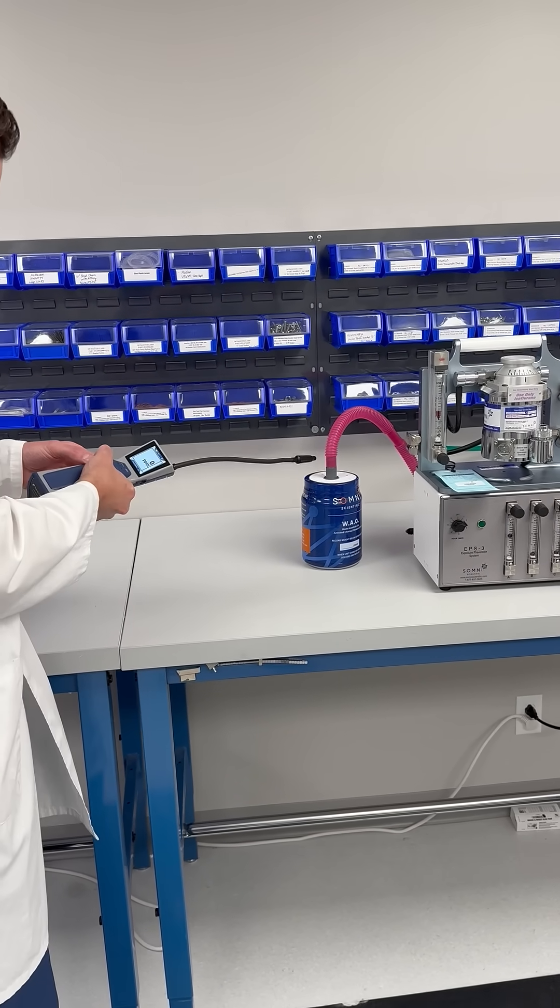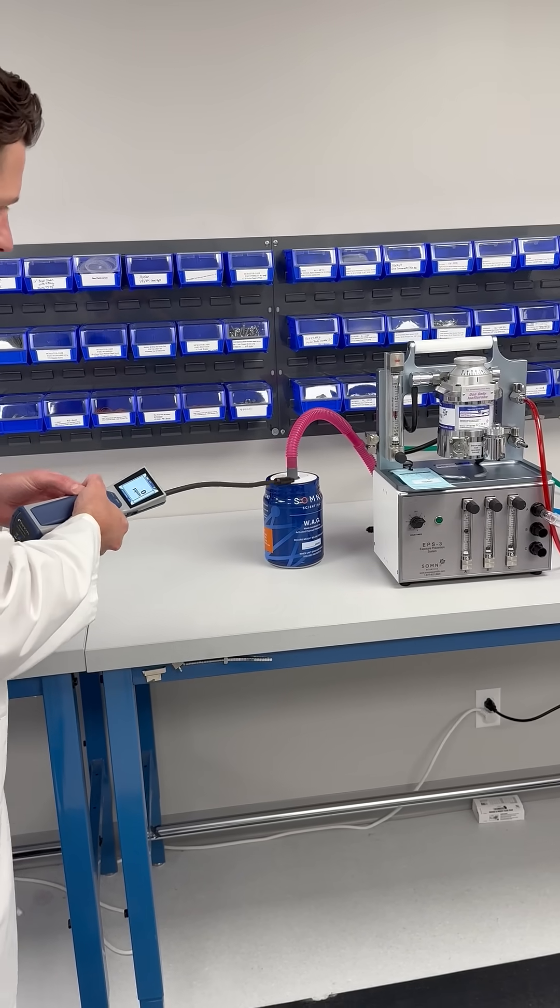Zero parts per million around the waste anesthetic gas canister.